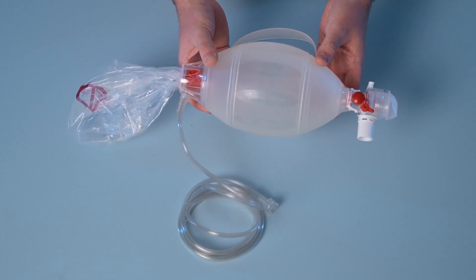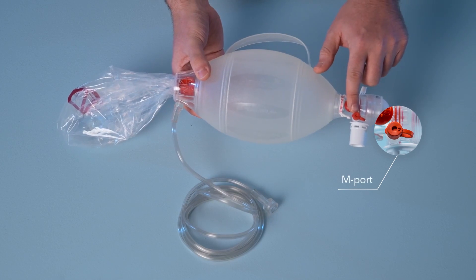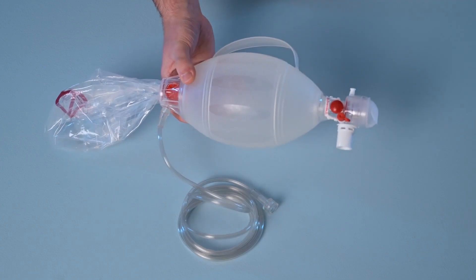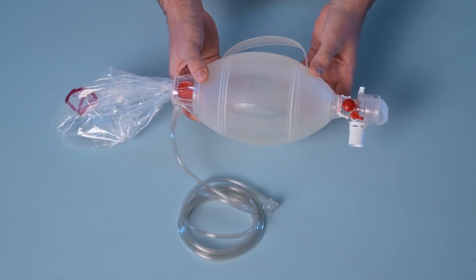Most Spur2 products also come with an M-port, and this M-port can be used for the purposes of end tidal CO2 monitoring or the delivery of medication.